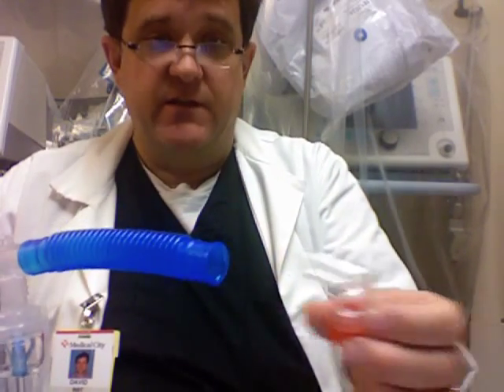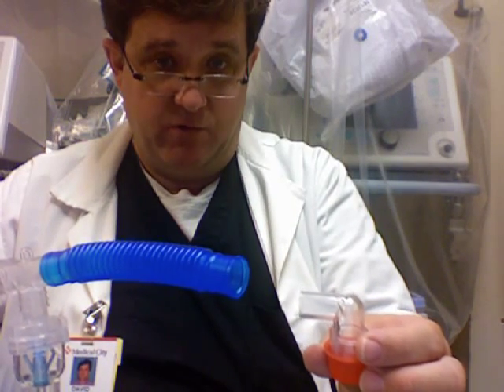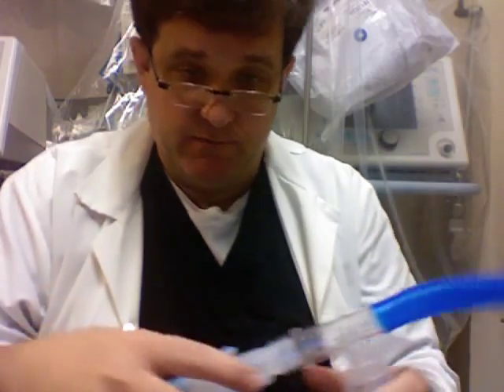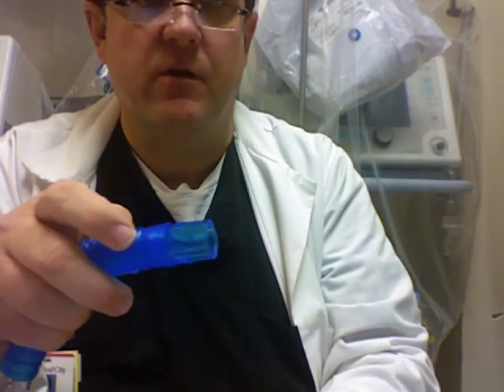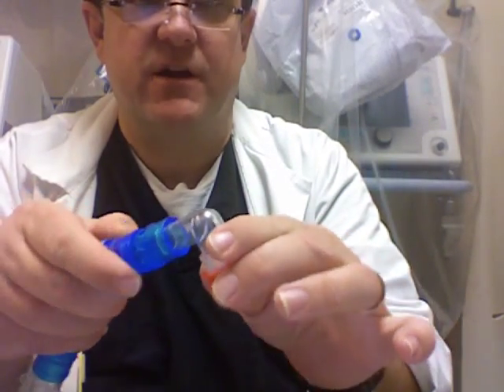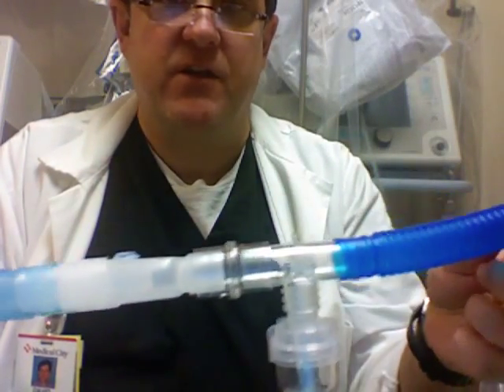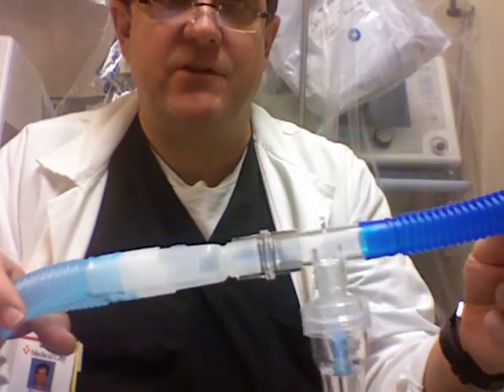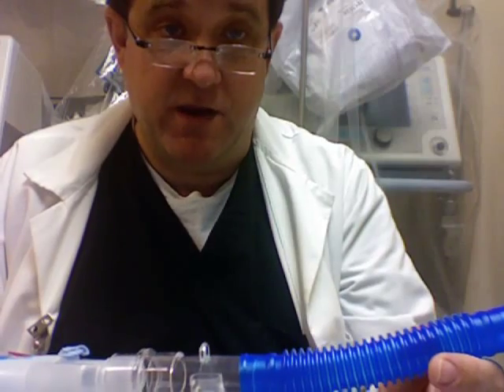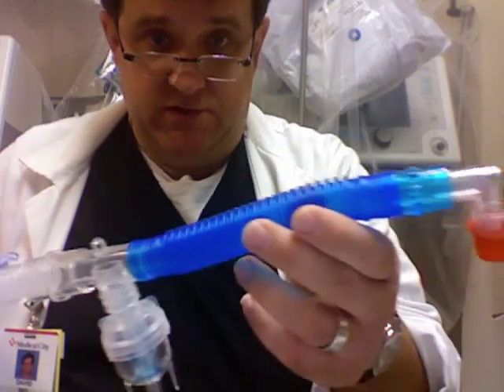On this end, this is a 22 female, and it won't go over the 22 male, so I need another adapter. This adapter is 22 millimeter on the outside and 15 millimeter on the inside, so I can connect my airway adapter to it — now I have the ventilator Y. The only thing I'm missing here is an HME. Some people choose to put their nebulizers in front of the Y and in front of the HME.